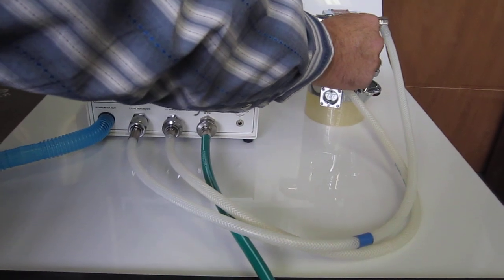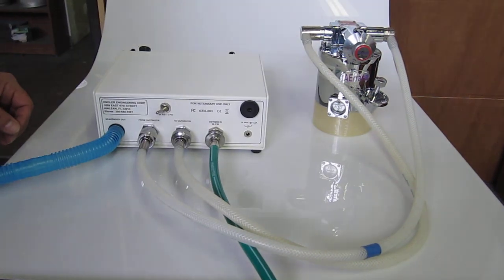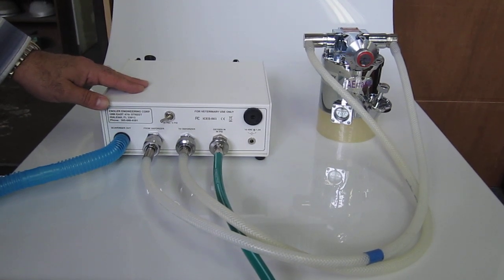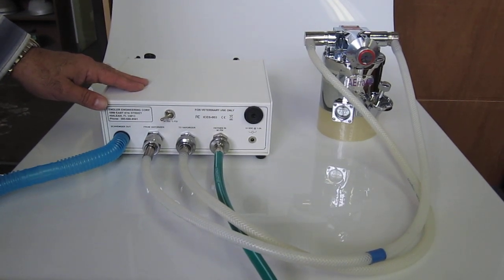If you leave the vaporizer turned off, the ADS-2000 will now be strictly a ventilator, not an anesthesia machine function, but just a ventilator.